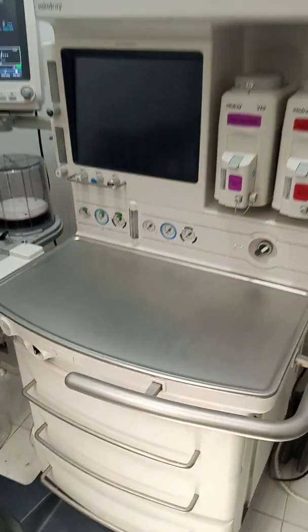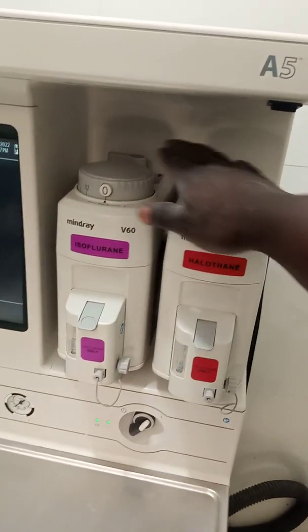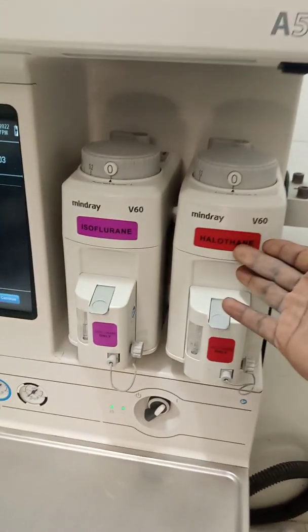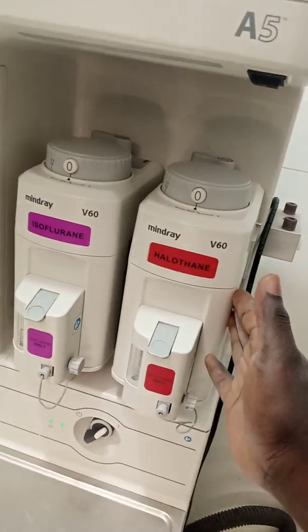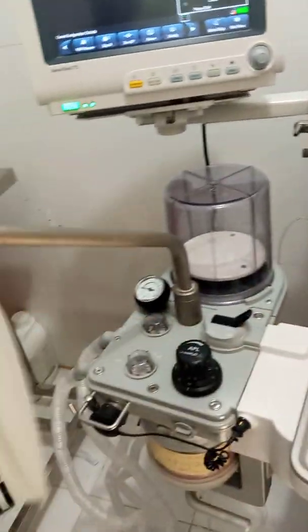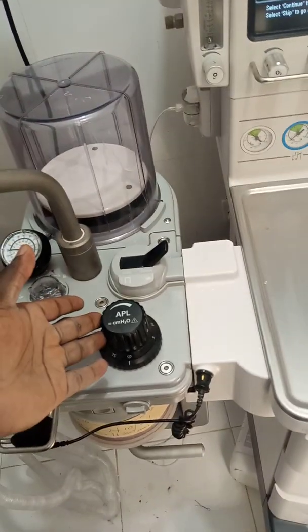Let's talk about some of the key components of the anesthesia machine. These giant objects that you see right here are the vaporizers. We have a lot of anesthetic agents that we actually put in these, but these particular two are halothane and isoflurane specific. This is halothane and this is isoflurane. We have our ventilator right here. This is the reservoir bag. We have our APL valve that can be used to increase airway pressure and also to reduce the work of breathing.